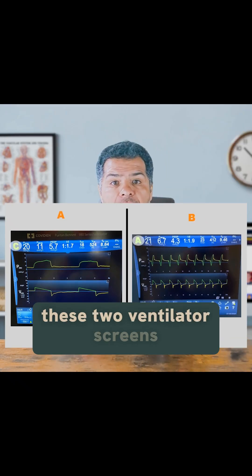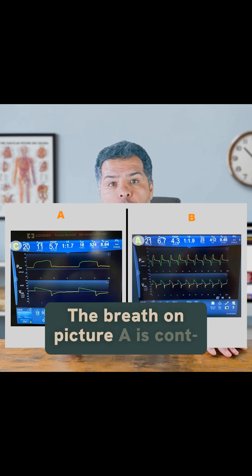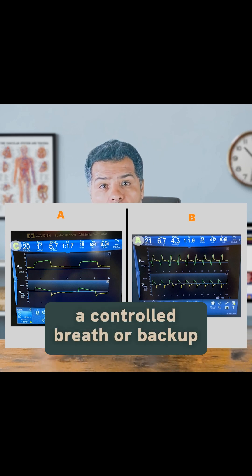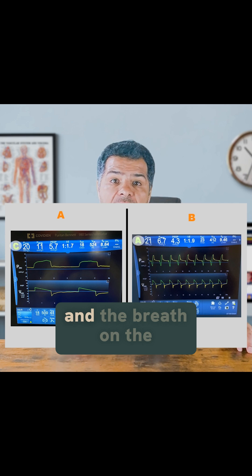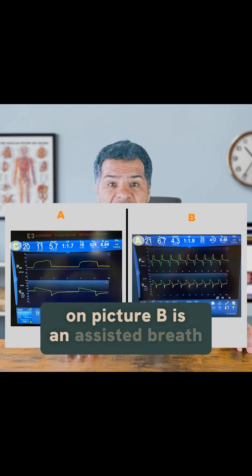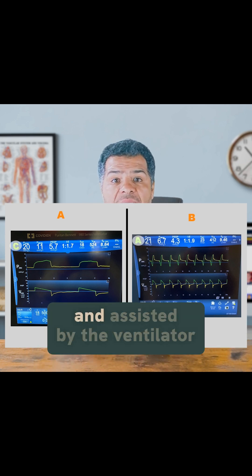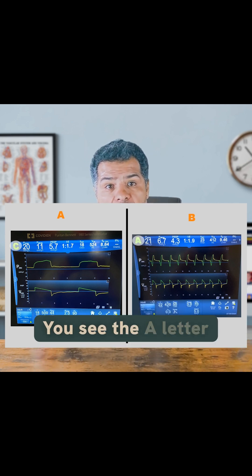Take a look at these two ventilator screens. The breath on picture A is a control breath, or backup breath, labeled as a C breath. The breath on picture B is an assist breath that was triggered by the patient and assisted by the ventilator — you see the A letter.